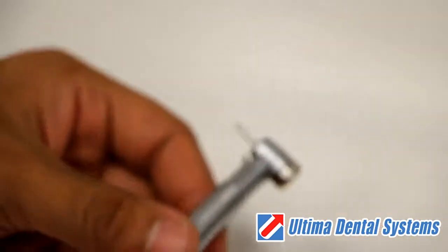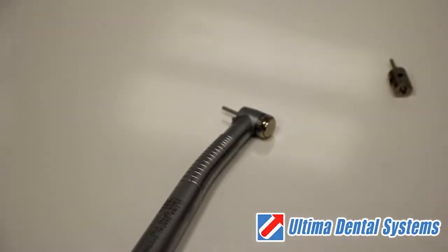You have now successfully completed the installation of a high-speed handpiece turbine.